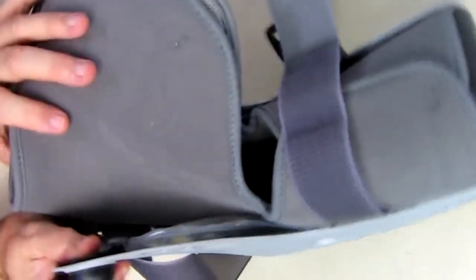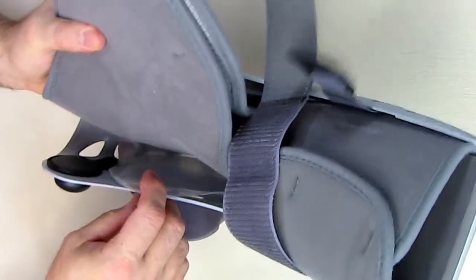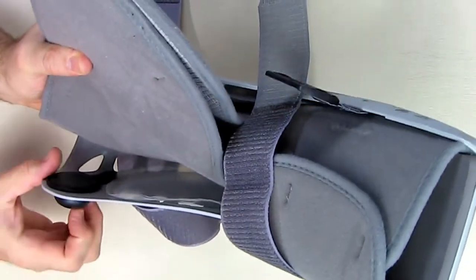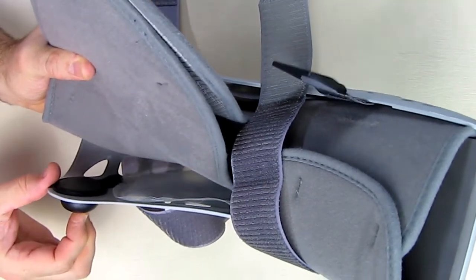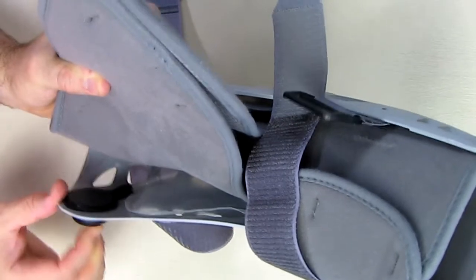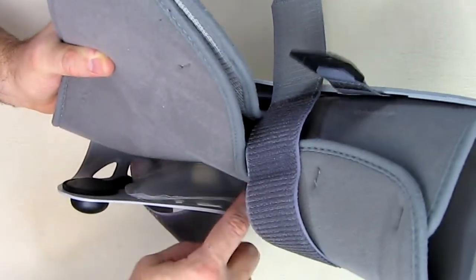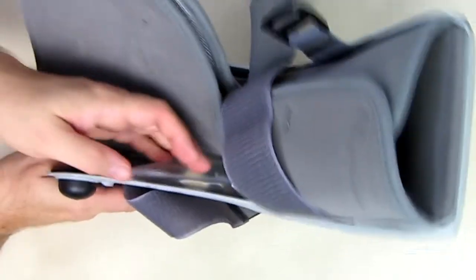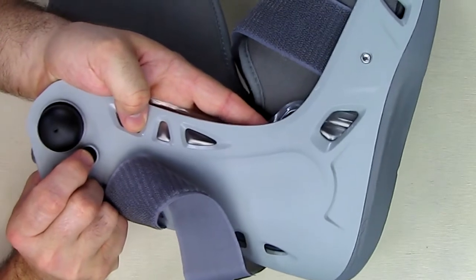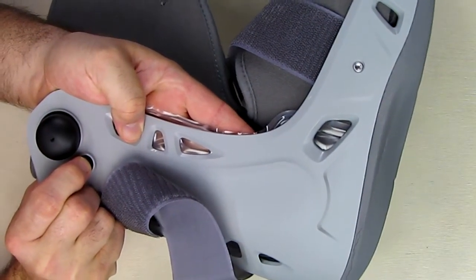So we can gain access to this part right here. On each one of the sides you see this clear-looking bag — that bag is filled with air. As I expand this, you can almost hear it filling up. This is now expanding just like a balloon. To release the pressure, you just push this little button right here, and you can hear the pressure coming out.